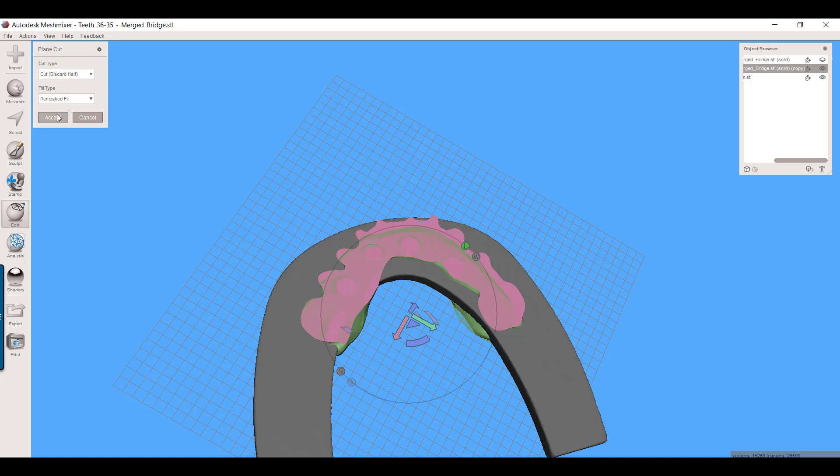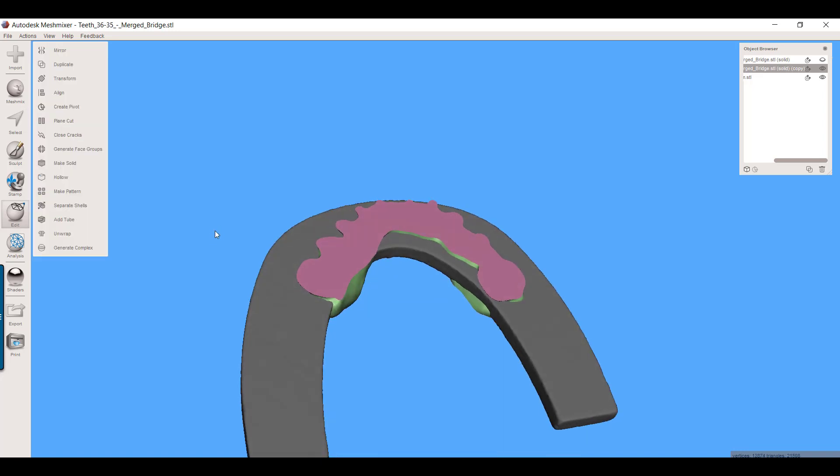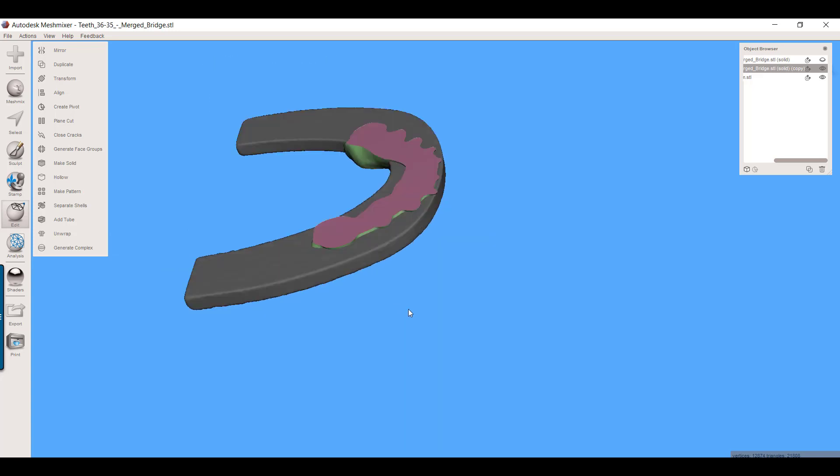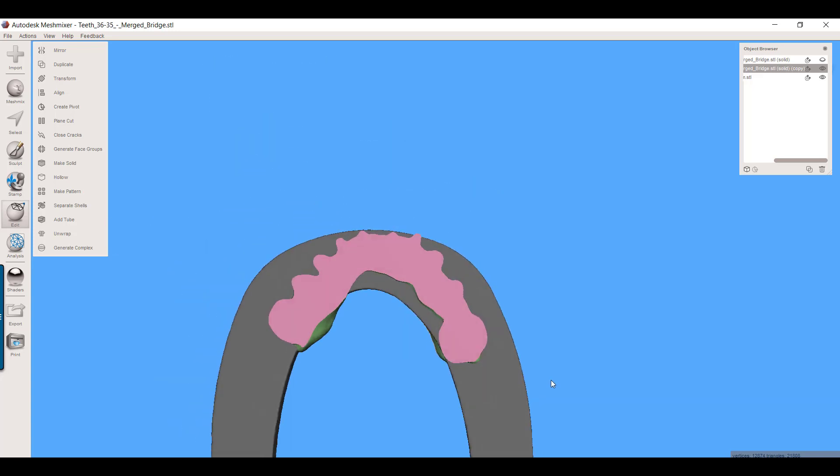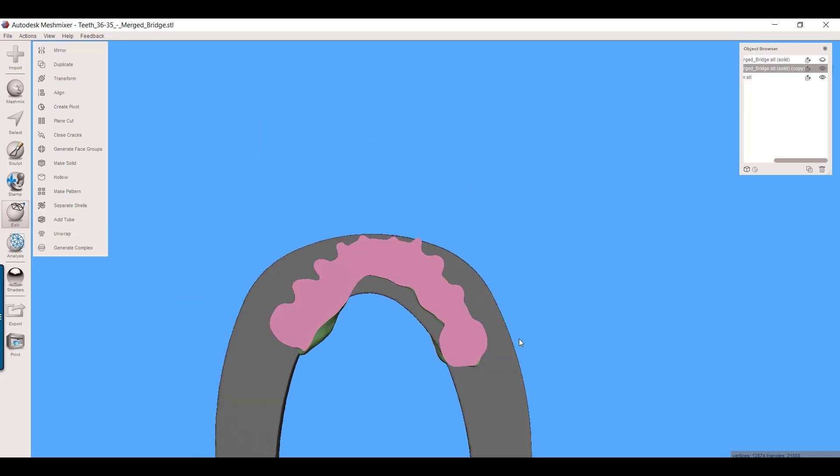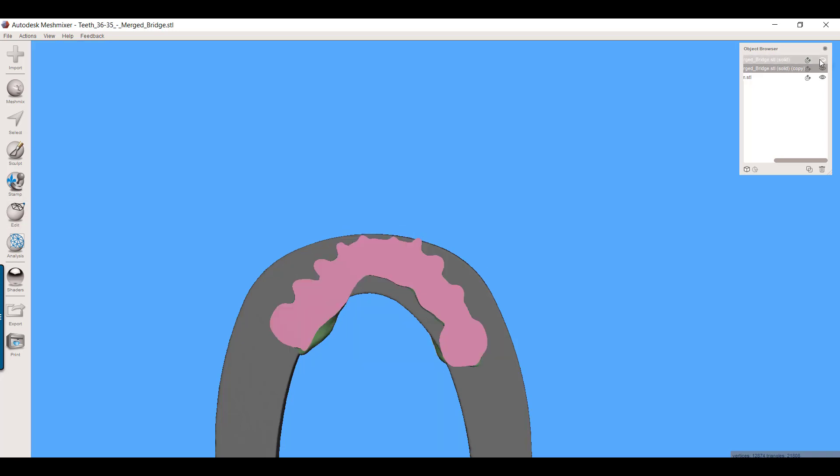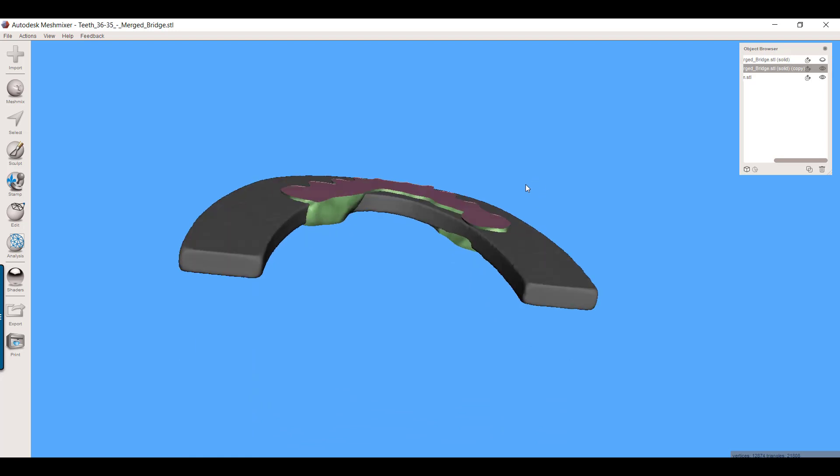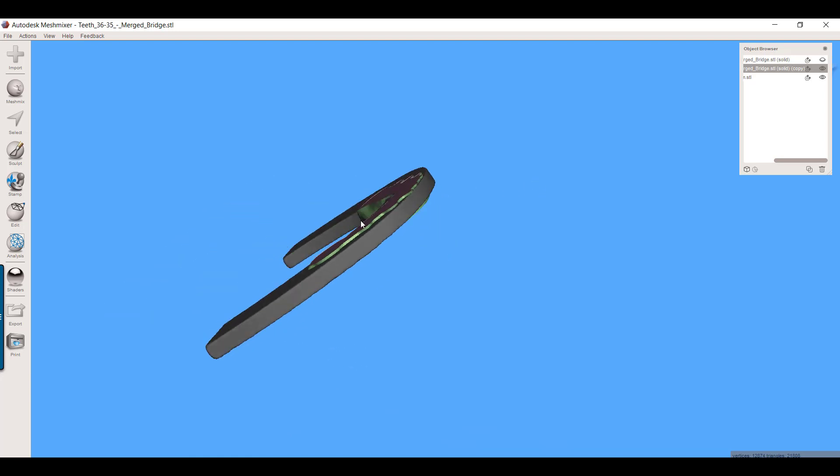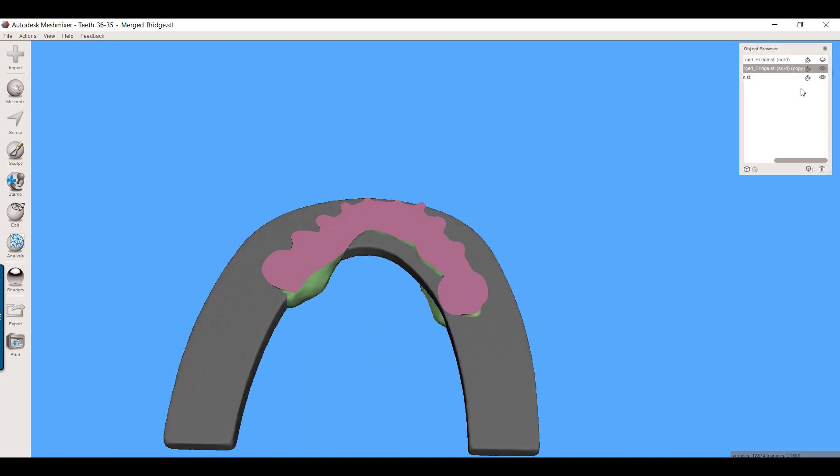Now if you haven't figured it out yet, what I'm doing right now is I'm creating more or less a template that I'll be able to print this object right here, lay it on top of one of these Trilor wafers, and it will give me an outline of exactly how to cut this Trilor material where it can fit inside of a slot that I'm going to create in this. And you'll see in a moment how I do that, but this is looking good so far.